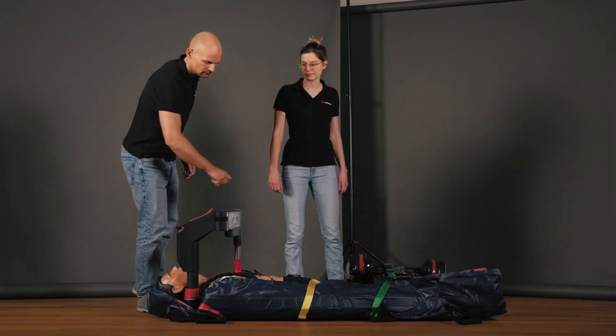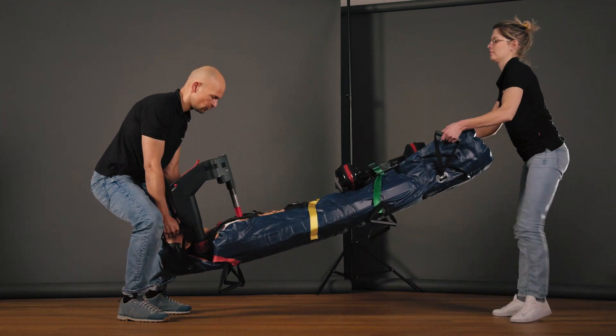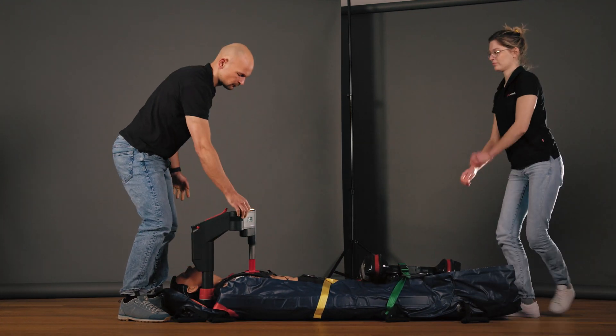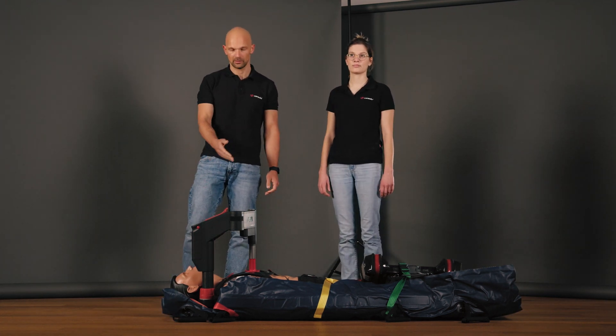I will start the therapy. The whole process works without problems if you make sure that the stamp does not slip.